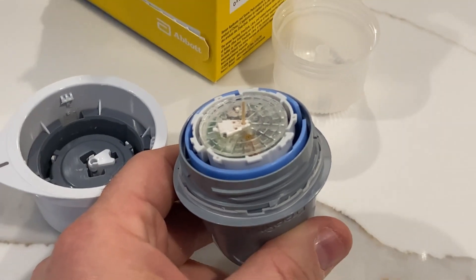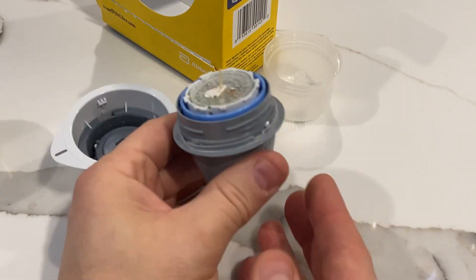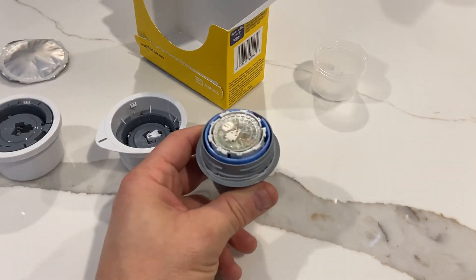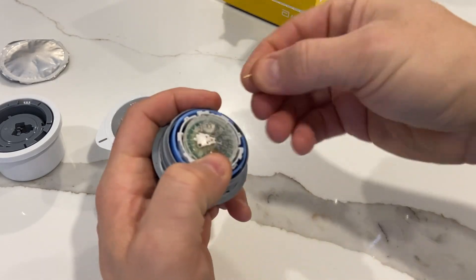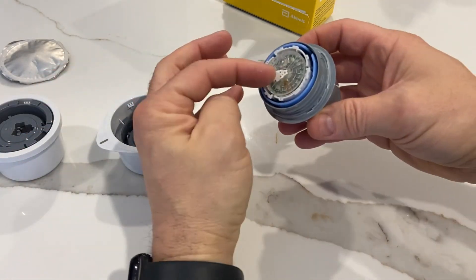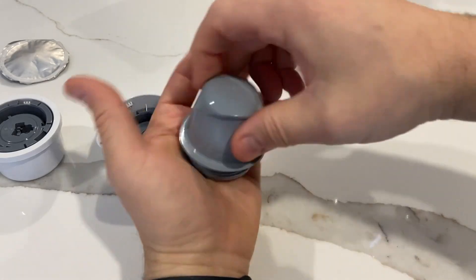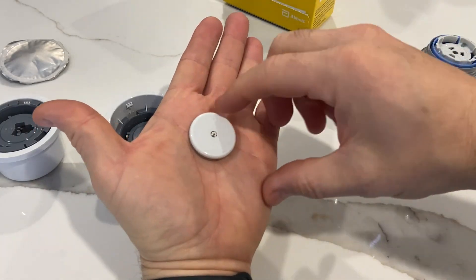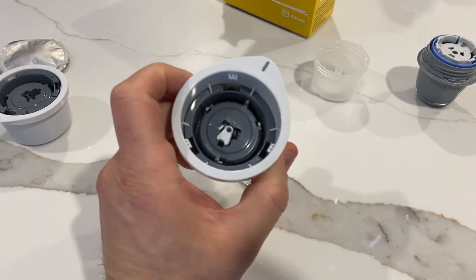I've attached a small toothpick — that's just a toothpick. There used to be a needle on there, but I didn't want to poke myself. Take the needle out — okay, that's a toothpick. And then what you're supposed to do is apply it to your body. So imagine the needle sticking out — you do this and then let go. There's supposed to be a sticky material here, so it sticks to your skin, and then it comes off and now it's stuck to you with the needle stabbed into your skin.